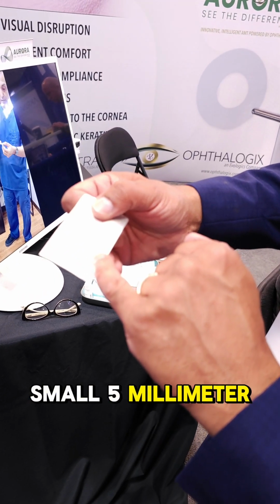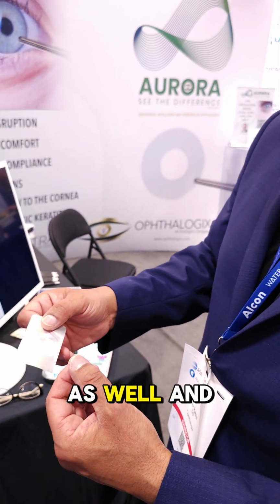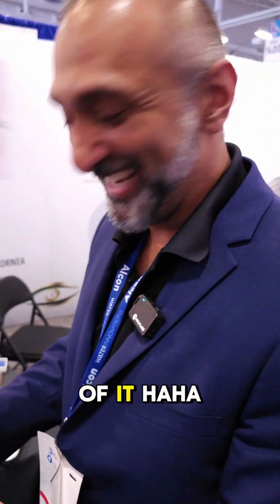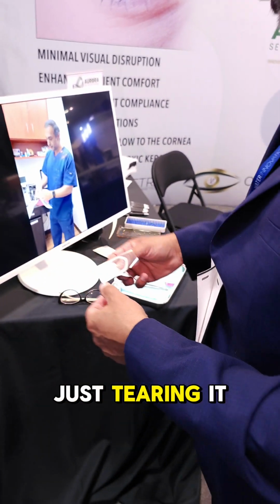We have a small 5mm disc here. If I open it too quickly, they're very light. There's a bit of a static charge to these sometimes as well, and the air can take it away and you lose your membrane. I've snatched them out of the air twice, but I don't want to make a habit of it. So I'm going to open it enough to get a hold of it. So I can now grab it with my forceps, but I'm not just tearing it open recklessly.